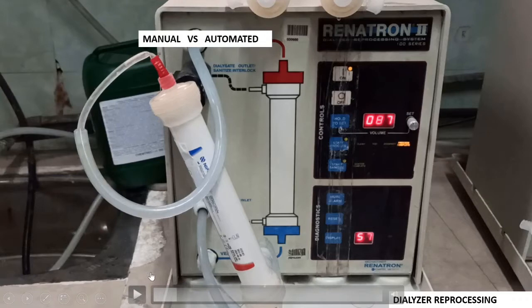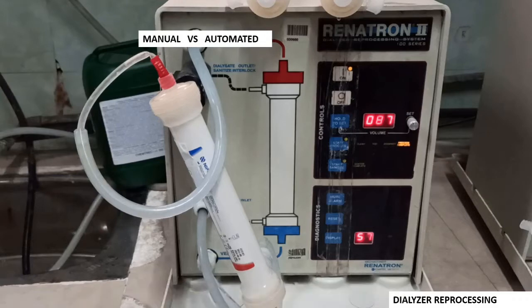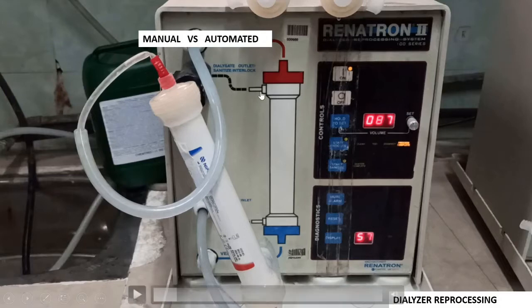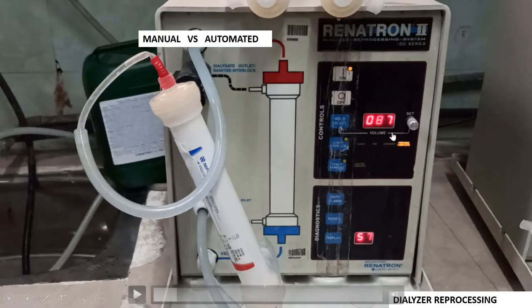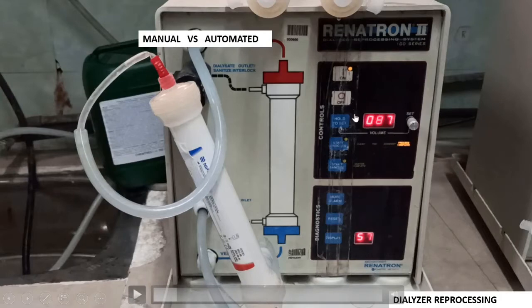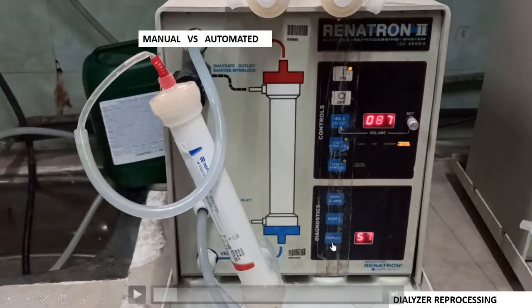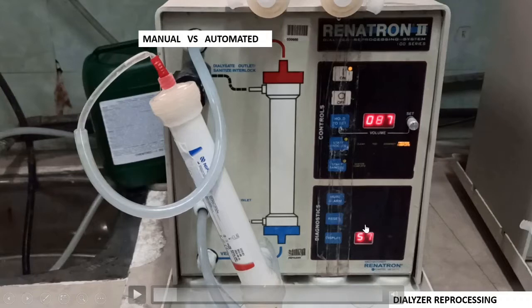Initial flushing of the dialyser should be done in the blood compartment. We will see in this video how it is being done. This is the part of the machine where the labelling is already done. There are two parameters shown here: one is regarding the on switch, off switch, and the hold switch. This is another panel for showing the diagnostics.